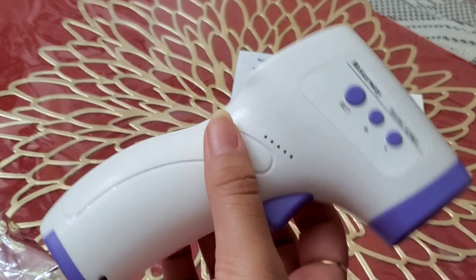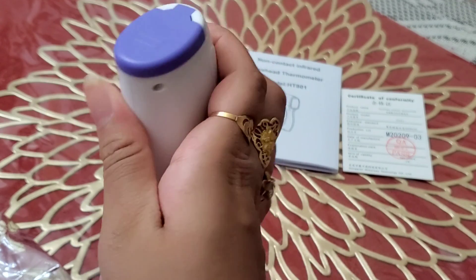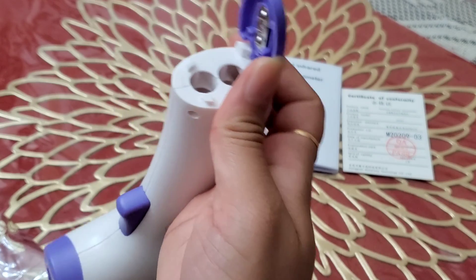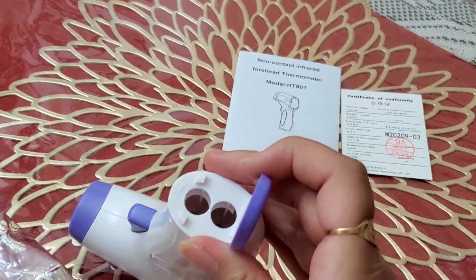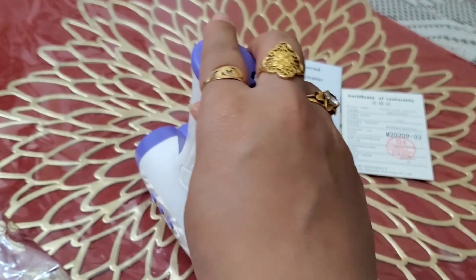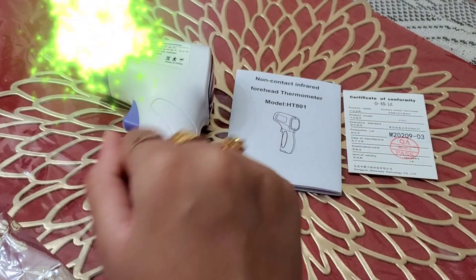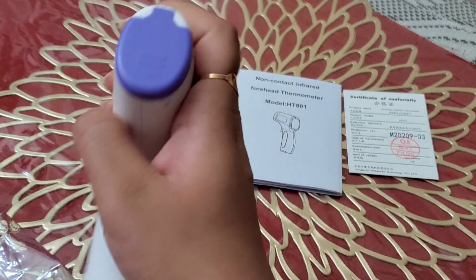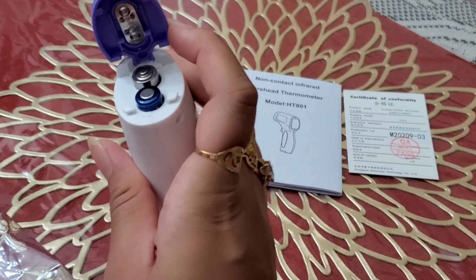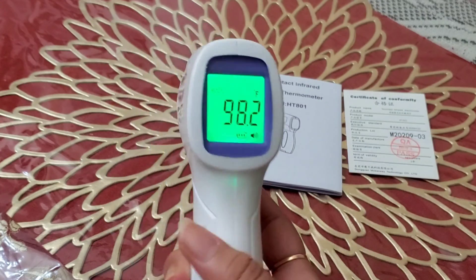And this is the trigger, which is pretty cool — seems like something you'd only see in a sci-fi movie, but nowadays this is what we're using. This is where we put in the batteries; there's an arrow showing you pull it out and open it up to add them. Judging by the size of the battery compartment, it takes two triple-A batteries. I do have the batteries — alright, I've inserted them. As you can see, the device has now turned on.